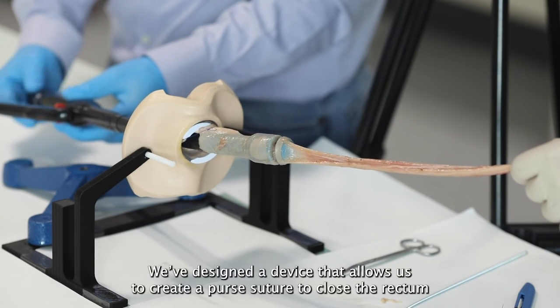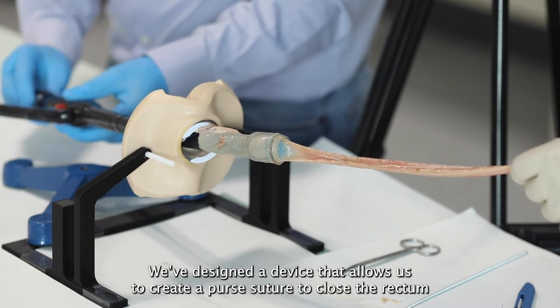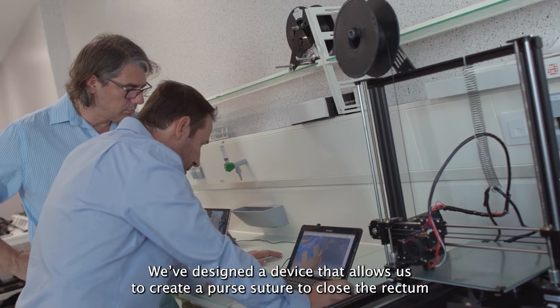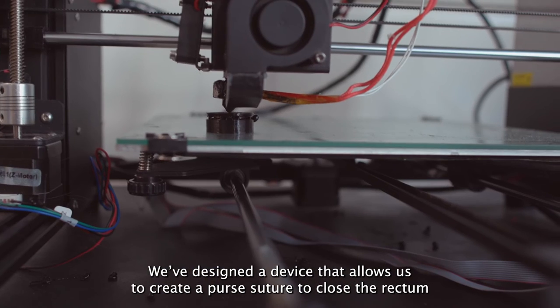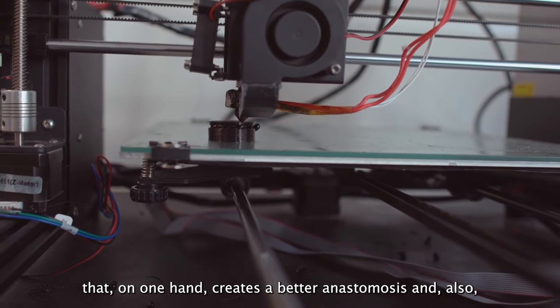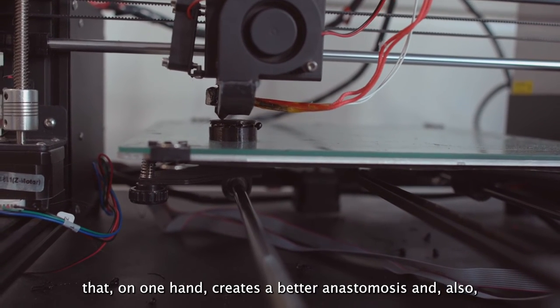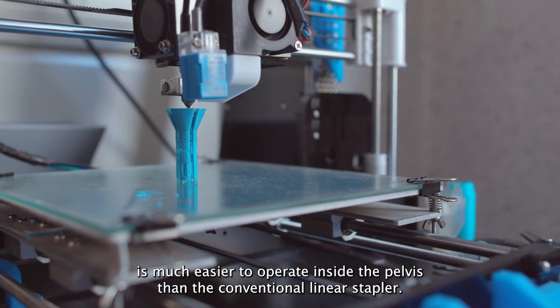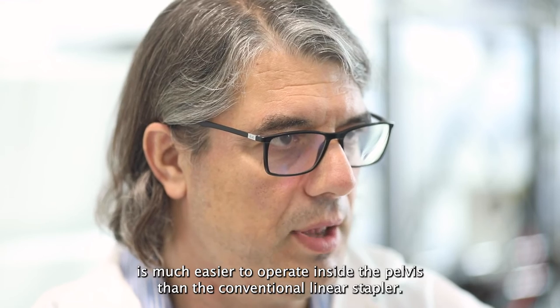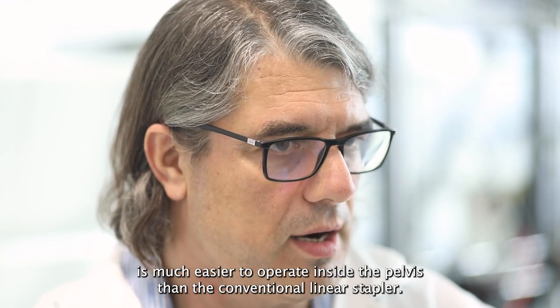We've designed a device that allows us to create a purse-string closure of the rectum that, on one hand, creates a better anastomosis and, also, is much easier to operate inside the pelvis than the conventional linear stapler.